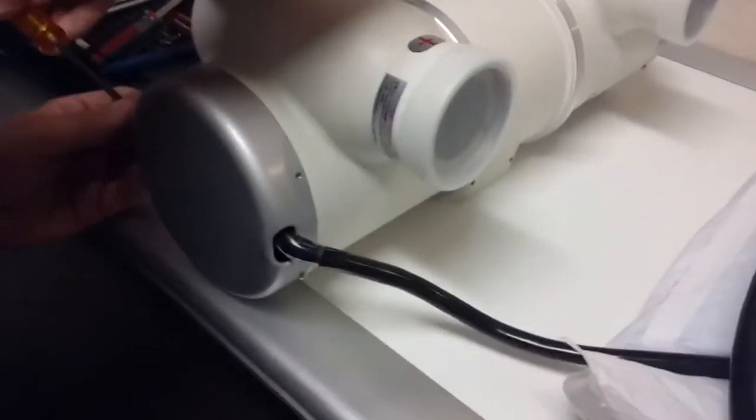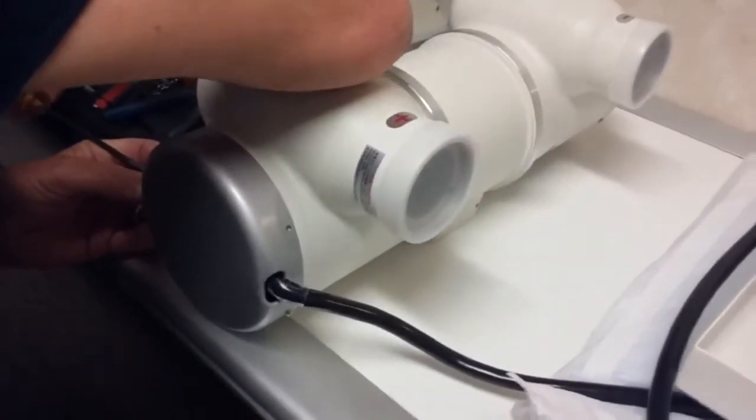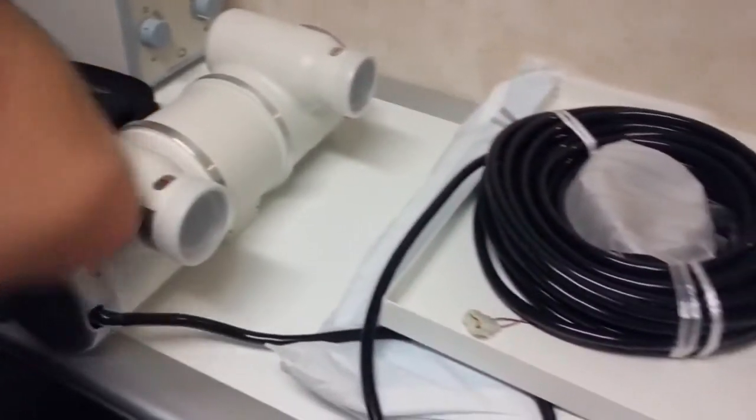This particular tube here, they connect. The other ones, they could give you a cable, but they leave it loose.